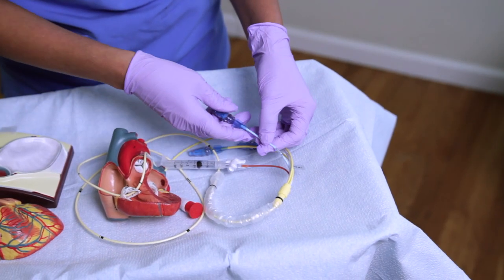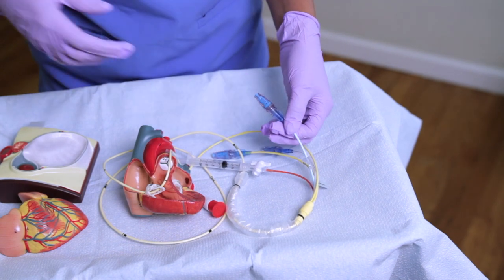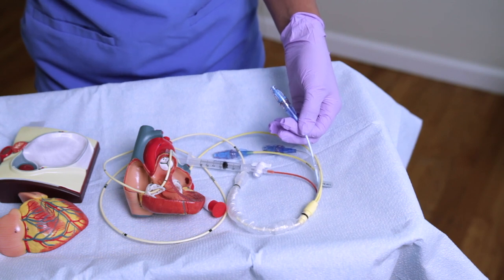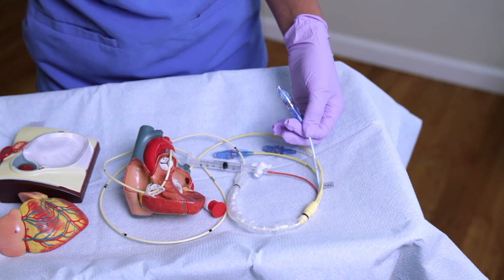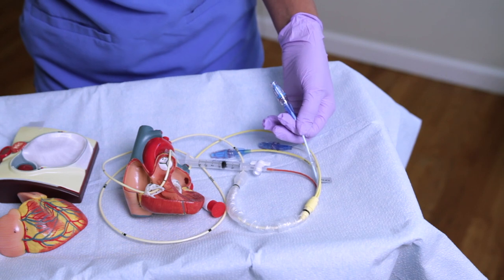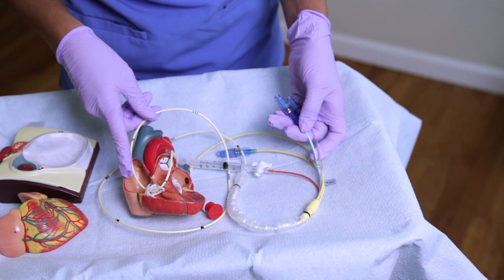The blue port allows you to monitor your CVP, or central venous pressure — this is your proximal port. Typically your CVP can range anywhere from two to six. Your provider will give you specific parameters to abide by and will notify the doctor if it is abnormal. This represents right ventricular preload and pressure and can be a continuous waveform measurement. You can also administer additional medication through this port, and it is slightly distal to the white port, with medication injecting into the right atrium.